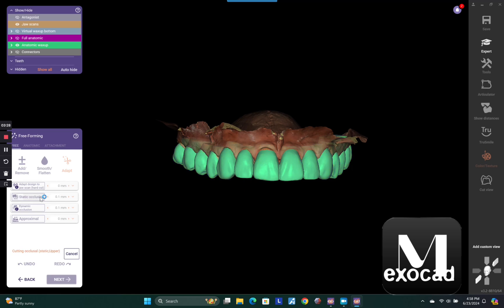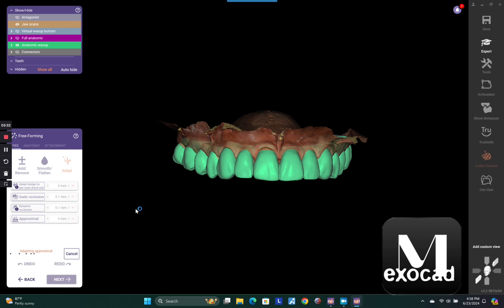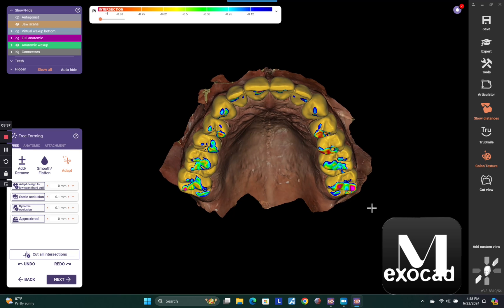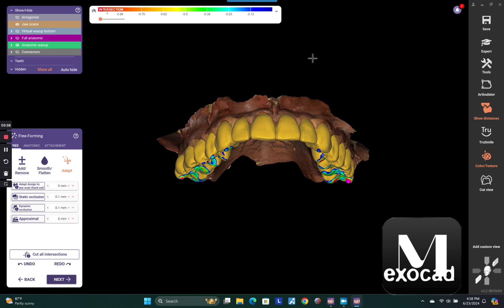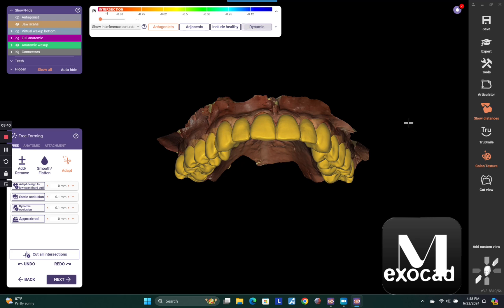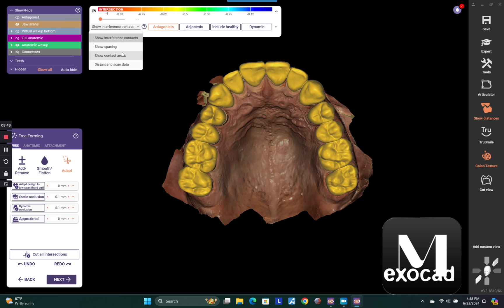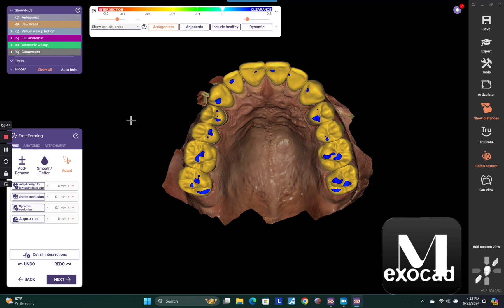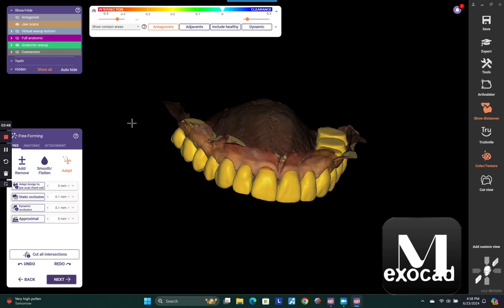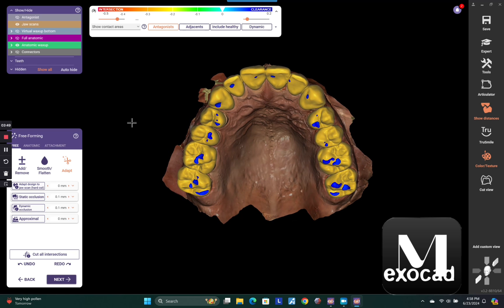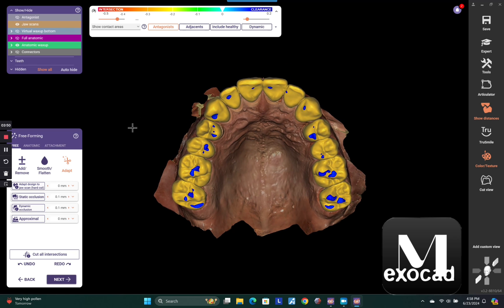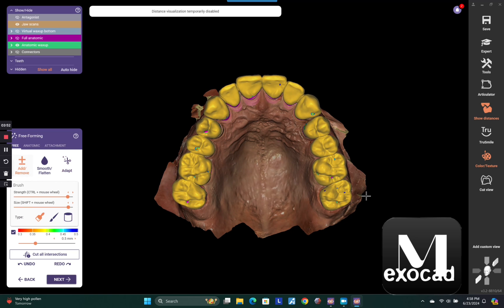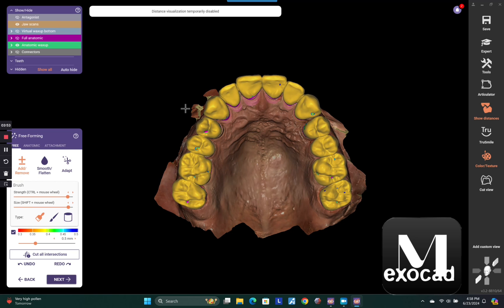Under your adapt, you could go ahead and just adapt your static occlusion, adapt your proximal contacts, because this is a segmented bridge. I have three different sextants here, posterior, anterior, and then posterior. So I'm going to go ahead now and show you guys the static occlusion really quick by going to view contacts here. So there's my static occlusion. If I want to modify that, I could. But again, that is based off of a wax up. So I'm just going to go ahead and go with it for the sake of time here.